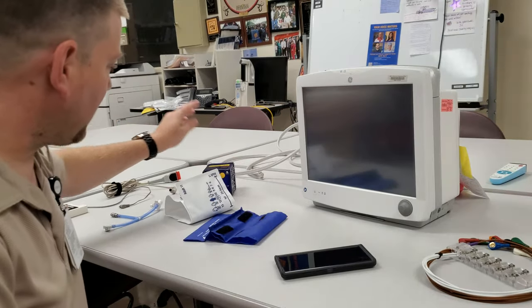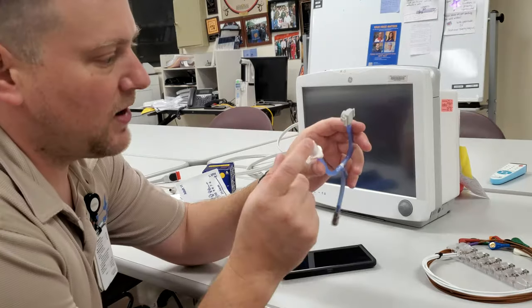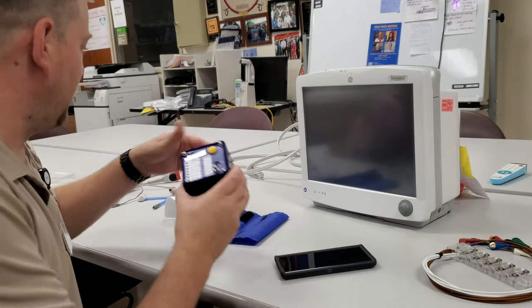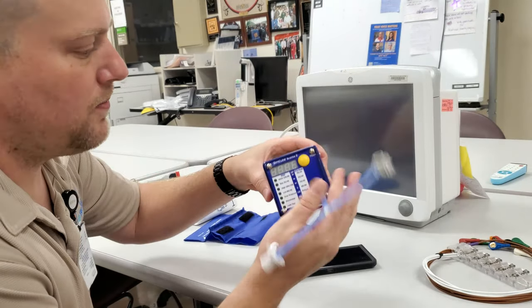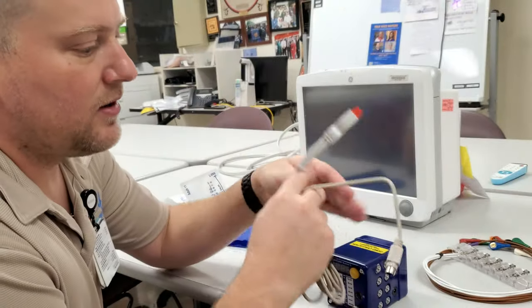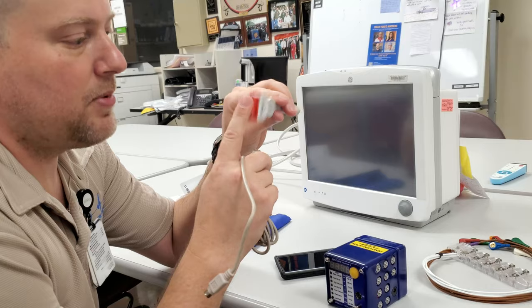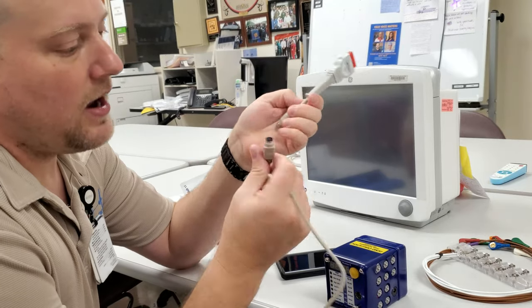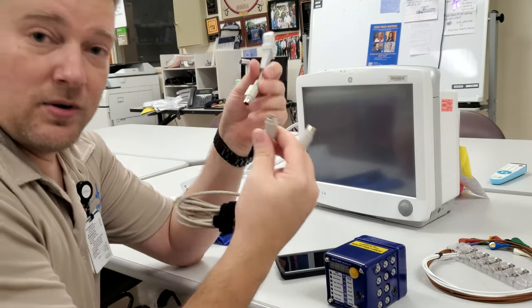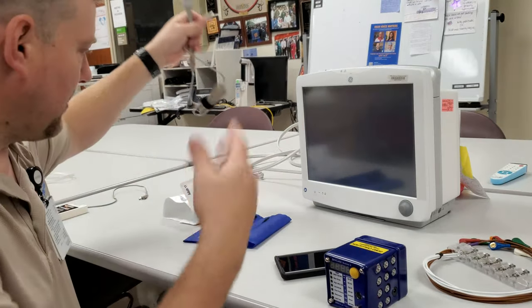So what comes in the box? You do have your cube. You have a set of adapters - it has a male and female side with a quick disconnect that connects right to the front of your device. Then we have adapter cables. If you want to simulate invasive pressures, you're going to need an adapter cable for your OEM vendor - this one's GE. And there's a male to female extension cable included with the backpack. They go together; I've got it shortened up to keep the tabletop somewhat clean.